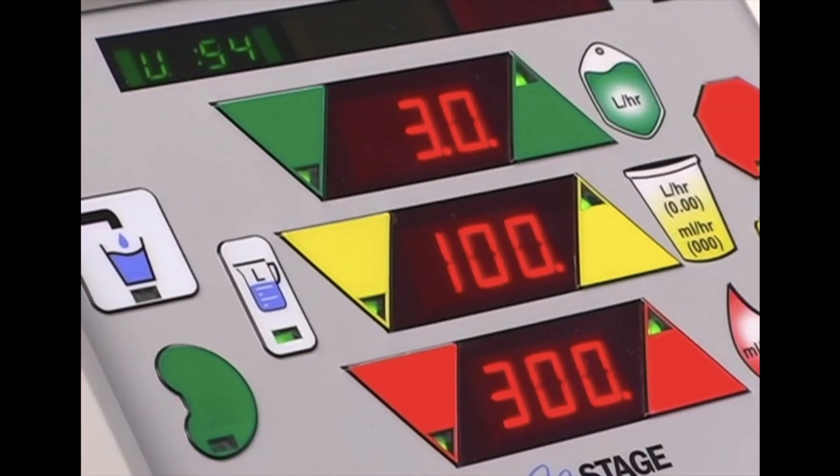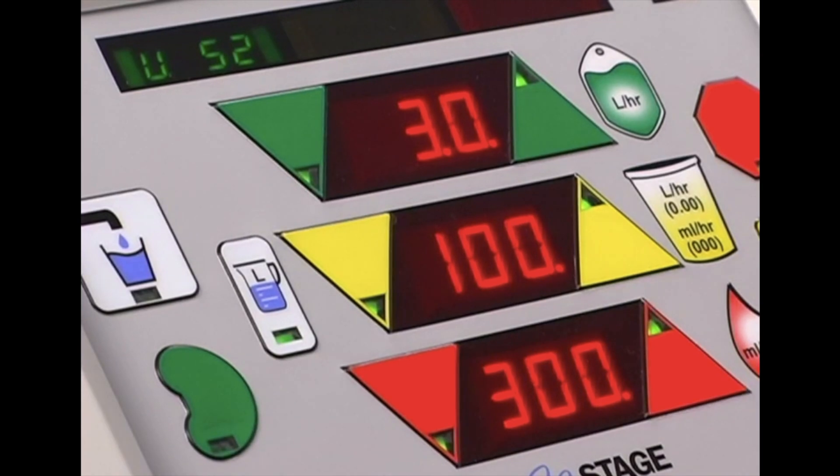Return to the rates screen and verify your therapy rates are set correctly. Congratulations! This concludes the Changing Therapy Fluid Bags module.